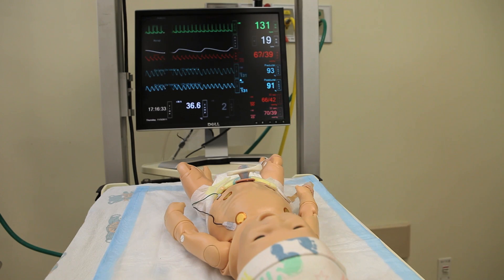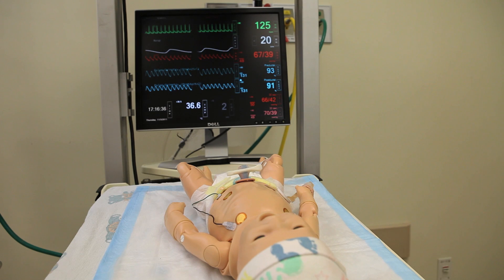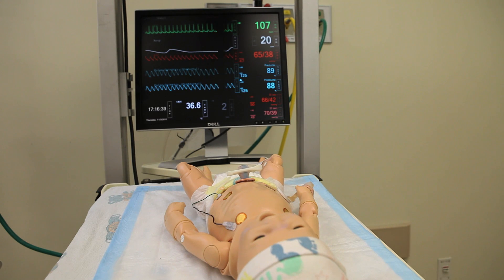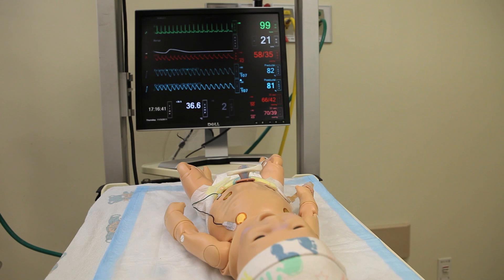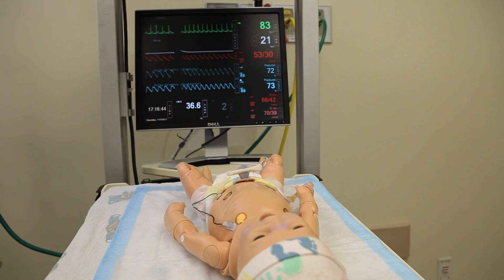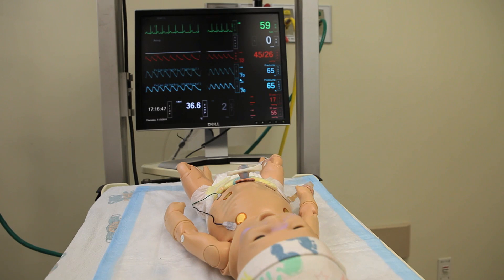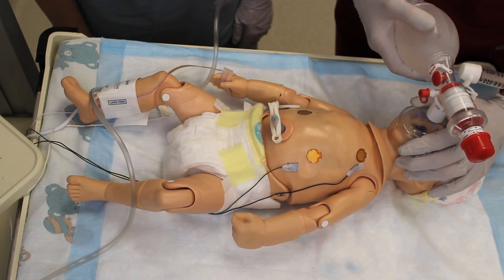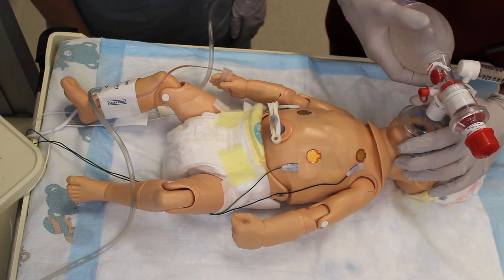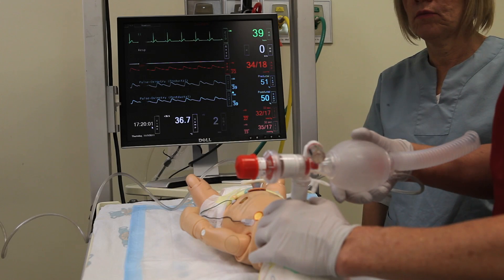We're going to see that the heart rate is going to decline now in this part of the orientation, and the baby will end up at a point where we need to do CPR. We're going to demonstrate how to do CPR on this mannequin. We can see here that the baby's apneic and bradycardic, and the respiratory rate is reading zero.